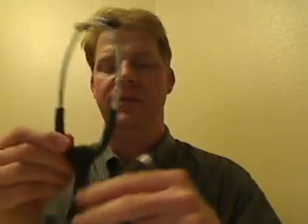Traditional aluminum ear pieces, rubber tips. This neck here is made of a synthetic rubber, fairly soft. You'll notice this portion of the neck here is wide, and that's because it houses a AAA battery which powers the amplification unit. Note that the battery door doesn't close very well.